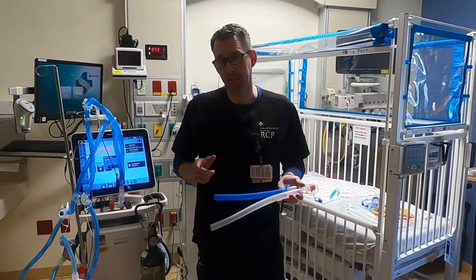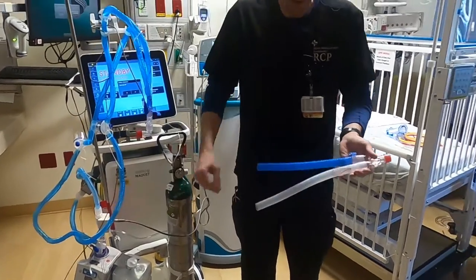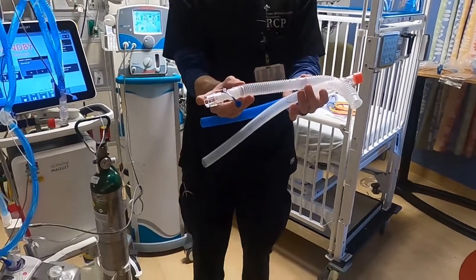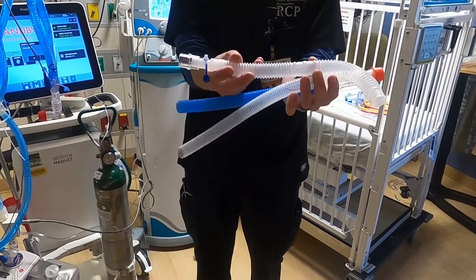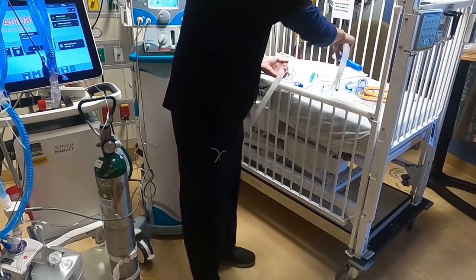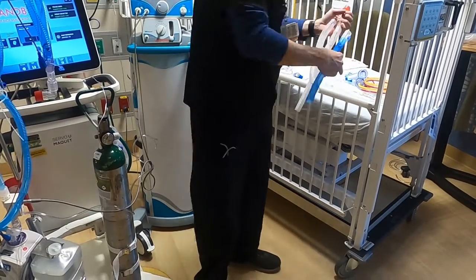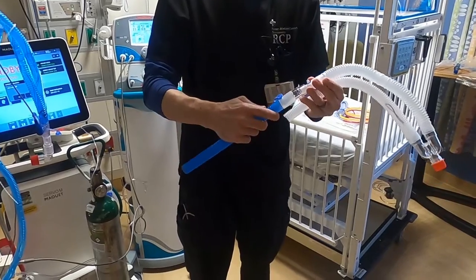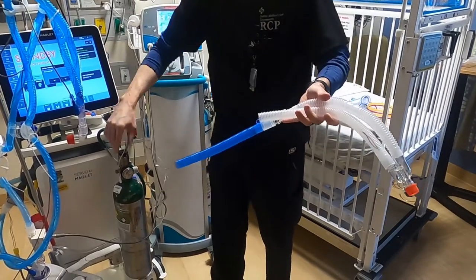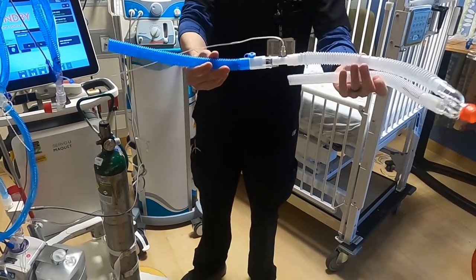For adult ventilator tubing, the injector is in the exact same place as before. The parts you need are a 22, a sample line adapter, and a piece of corrugated tubing — very simple. The inspiratory side comes off, your piece goes on there, then the inspiratory line reconnects. Then your sample line goes in its usual spot. That's your adult setup.